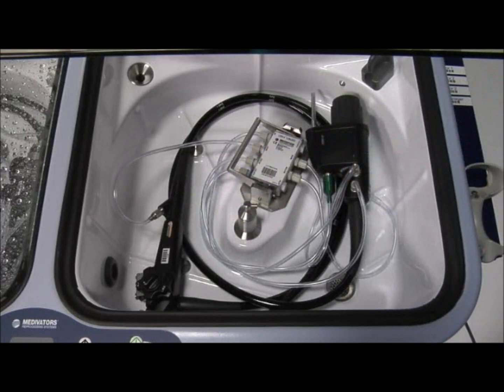Depending on the software version of your unit, you may also be asked to scan the barcode on the hookup connector block.